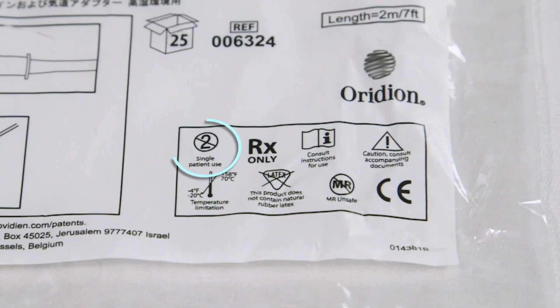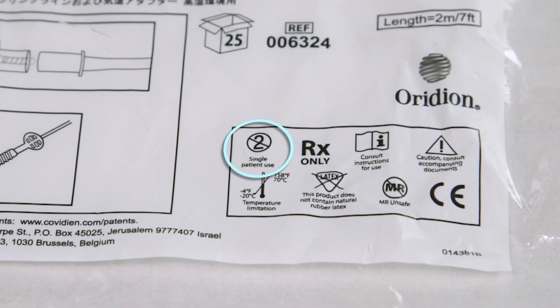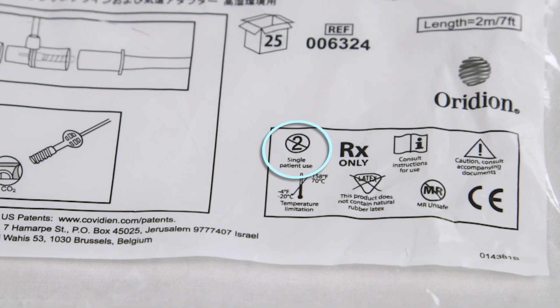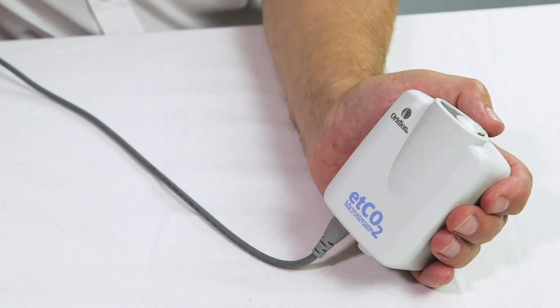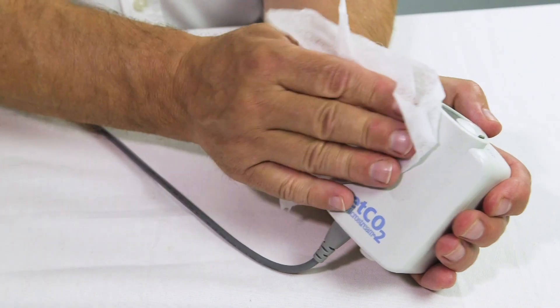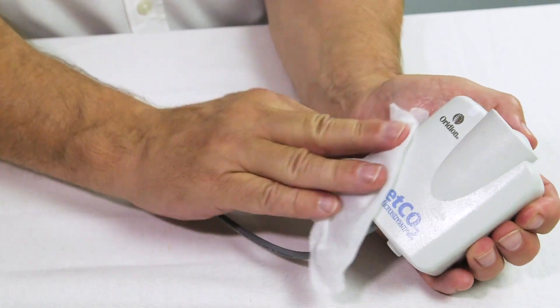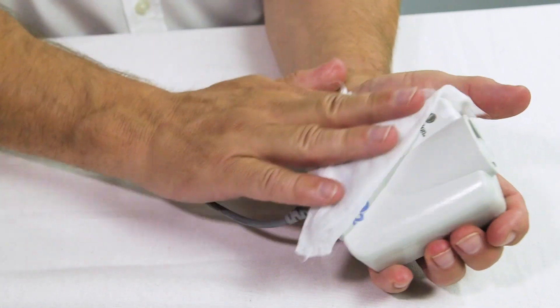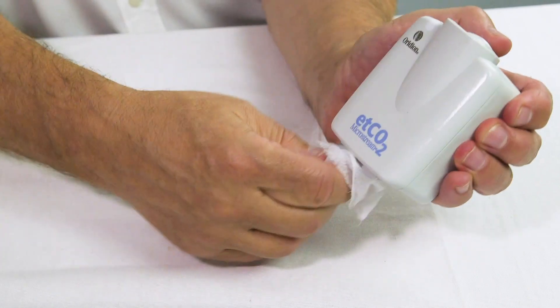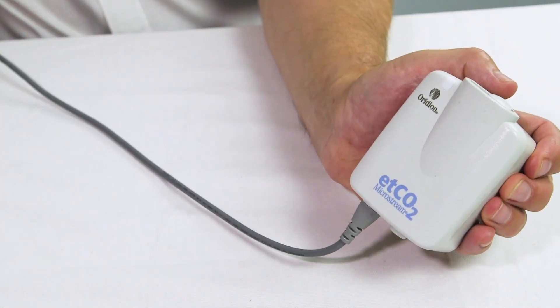Sample lines are single patient use and should be replaced at intervals. Cleaning of the Micropod module can be performed using a cloth moistened with soap and water, or various cleaning solutions listed in the Micropod operator manual.